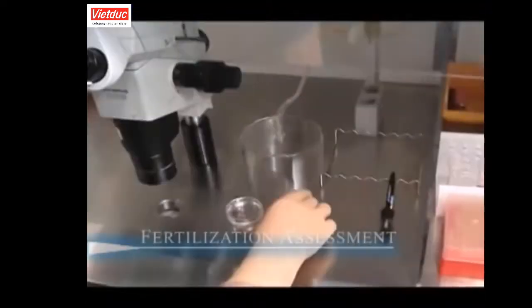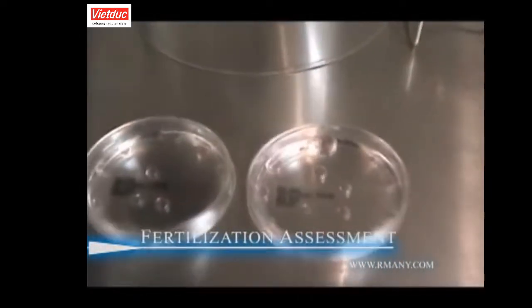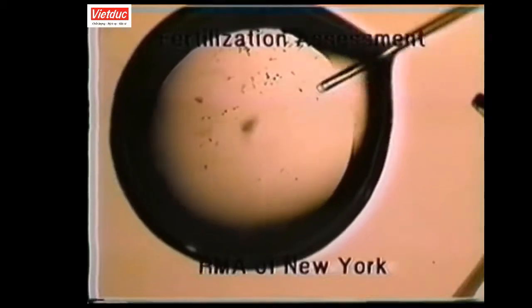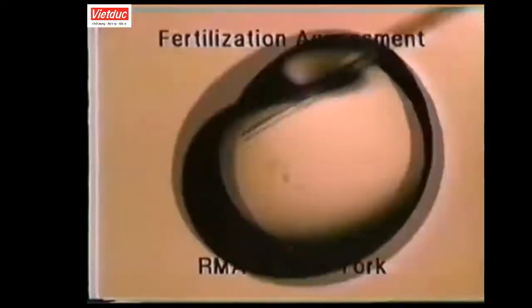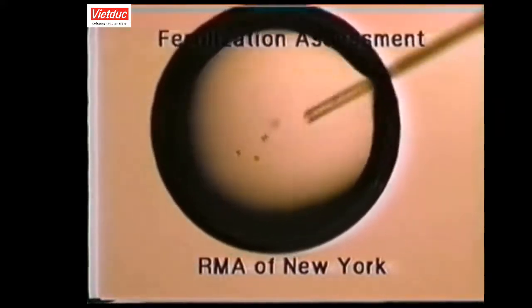On day 1, fertilization is assessed. All eggs determined to be normally fertilized are moved into new culture dishes, but only after 2 embryologists have verified that the patient information matches. Any cumulus cells that are still surrounding the eggs are removed at this time by gentle pipetting so that the cells do not obscure visualization of the eggs.